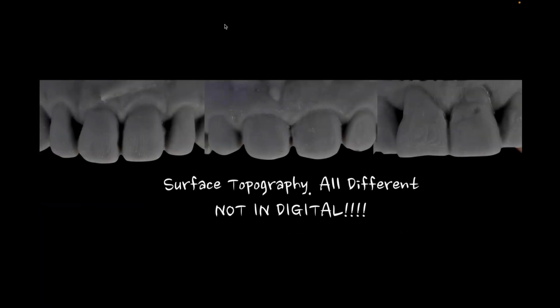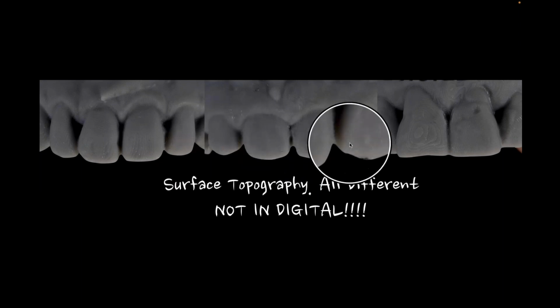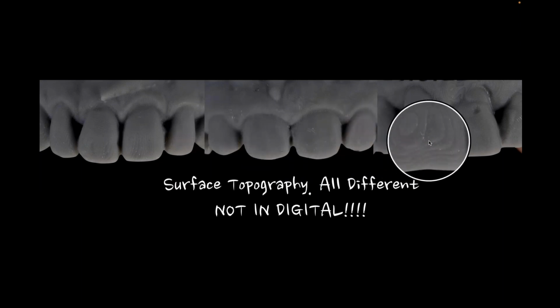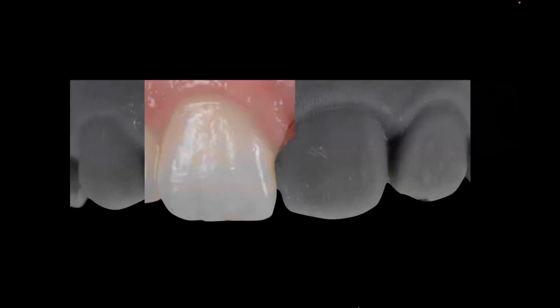One of the challenges is that in this digital world that we're in, the digital transfer of information is changing how we view things. And I would argue that it's kind of a problem for us because if you really look at what digital surfaces look like, and I'm trying to enlarge these for you to see them, these are what you see on digital prints over and over and over again. And this is not what you see on a good stone cast or in nature. So a lot of times, especially in high aesthetic cases like veneers, it's really important that we're seeing that.